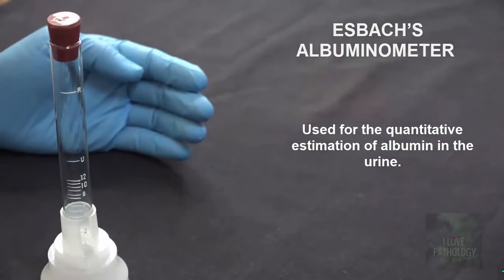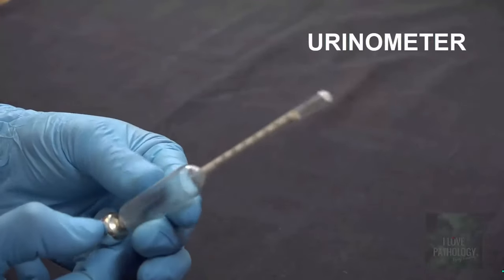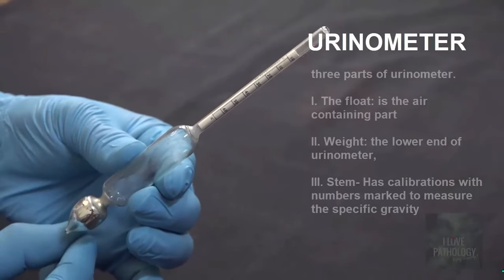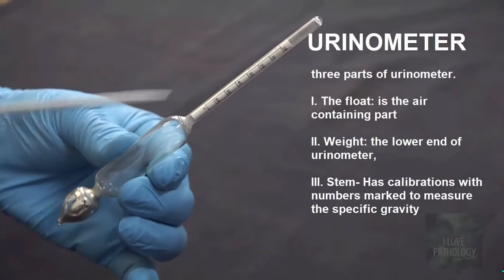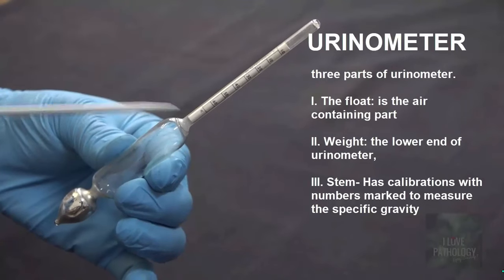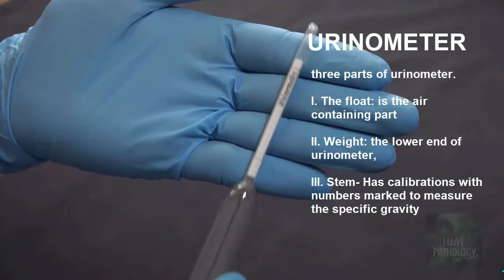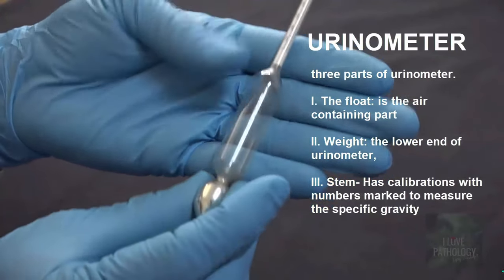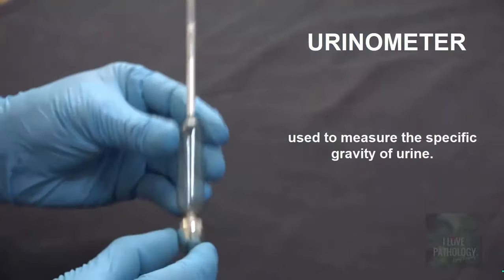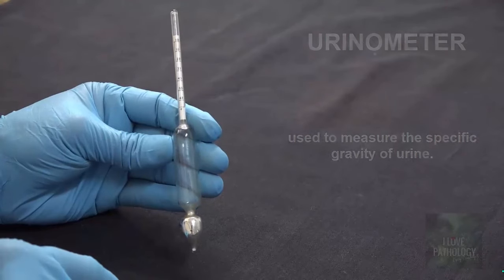This is a urinometer. This has three parts. The lower end is called the weight, the middle one is called the float, and the upper one is called the stem, which has calibrations. The calibrations are present to measure specific gravity ranging from 1.000 to 1.060. Use: it is used to measure the specific gravity of urine.